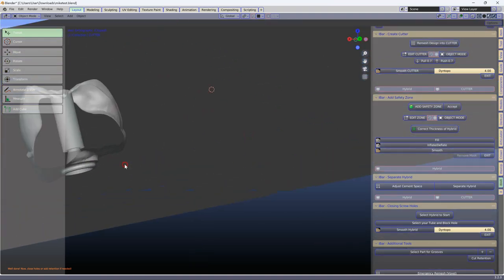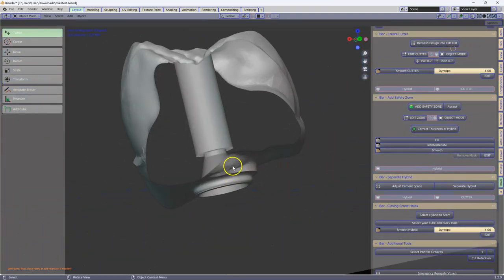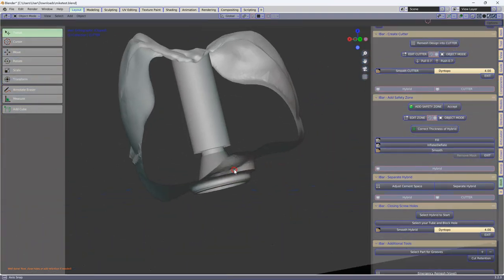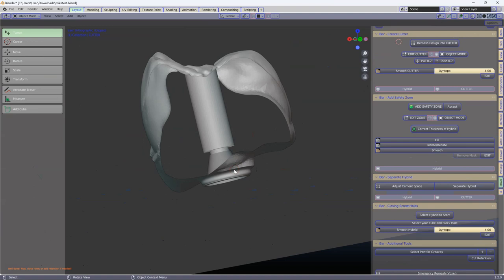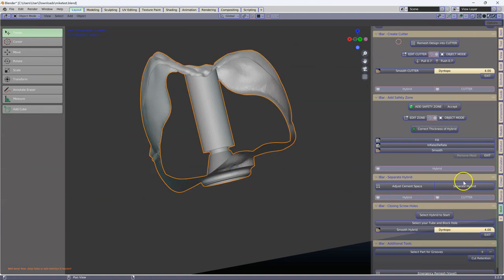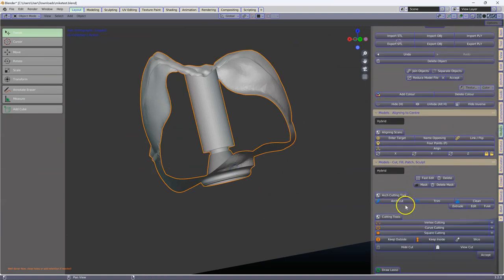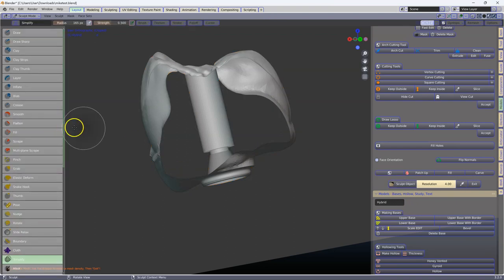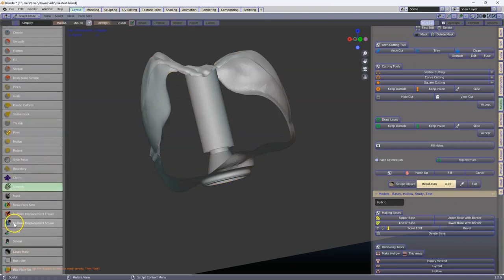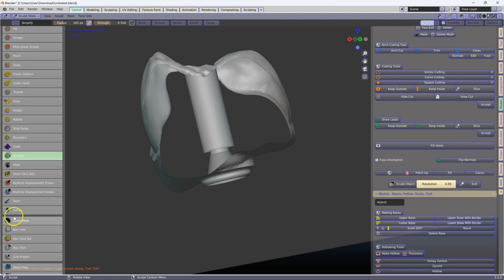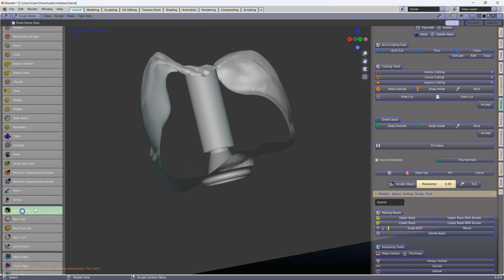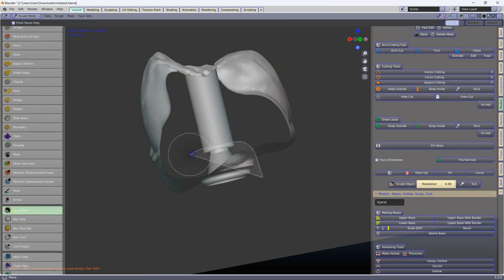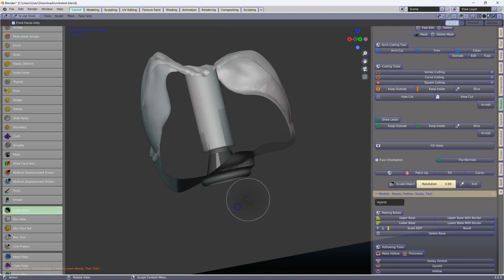Unfortunately, we've got defective mesh. Again, go to the model designer. Go to your sculpt. Look for your lasso. Lasso out the section over here, like that.